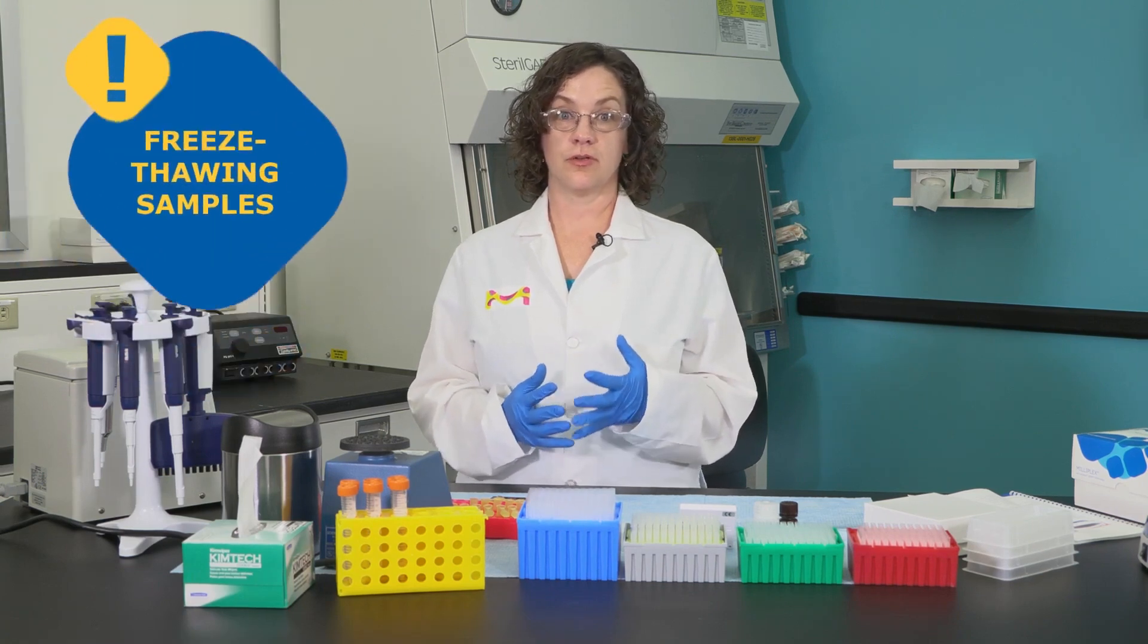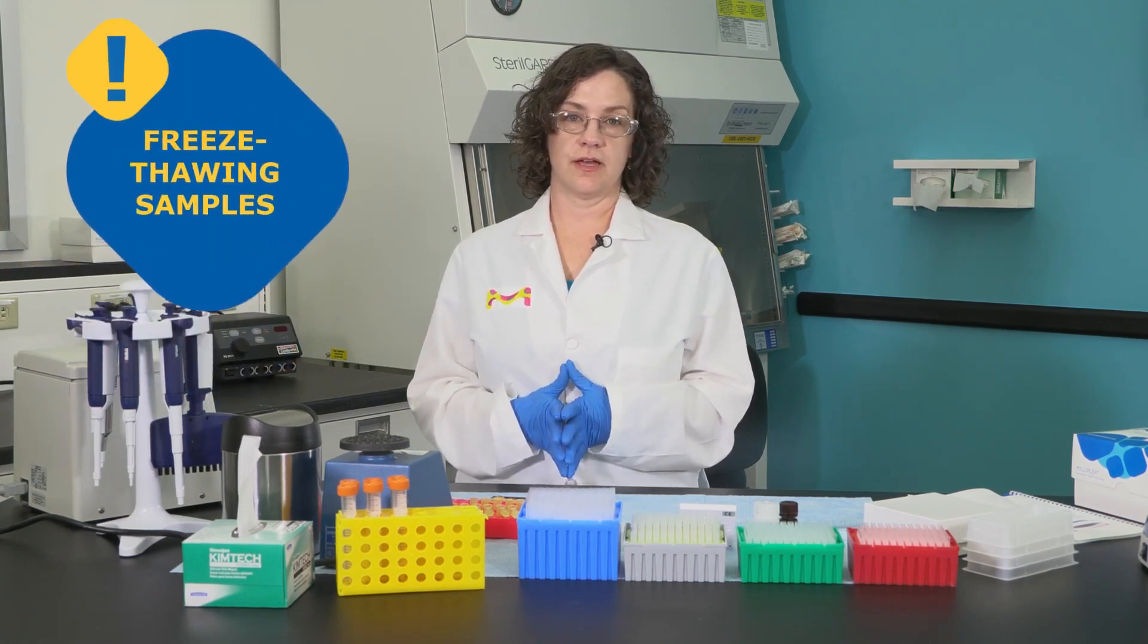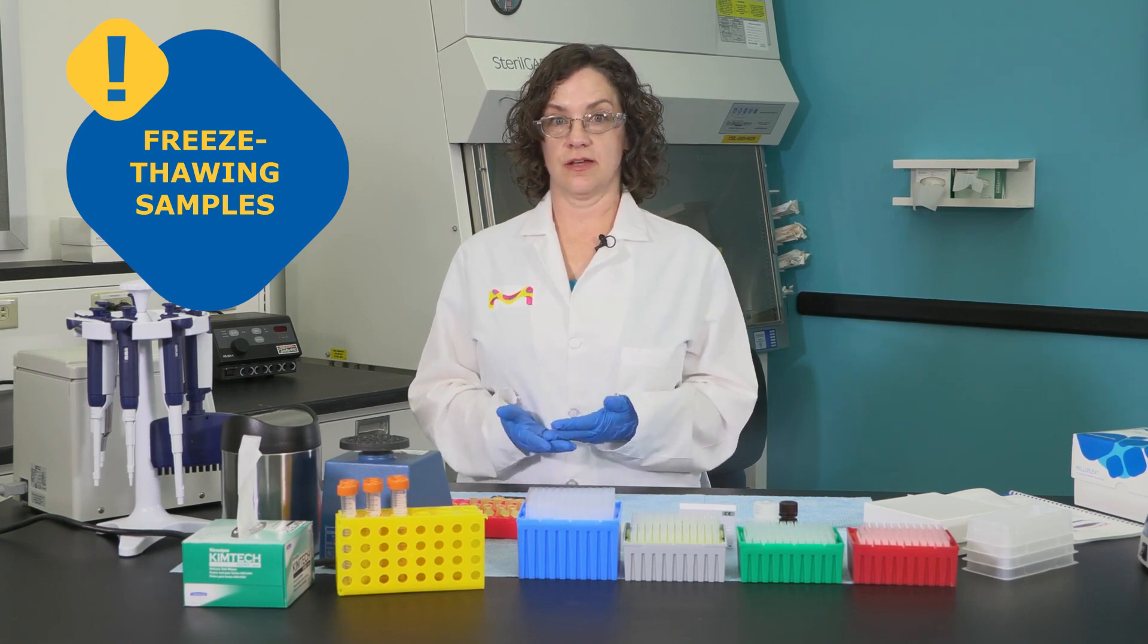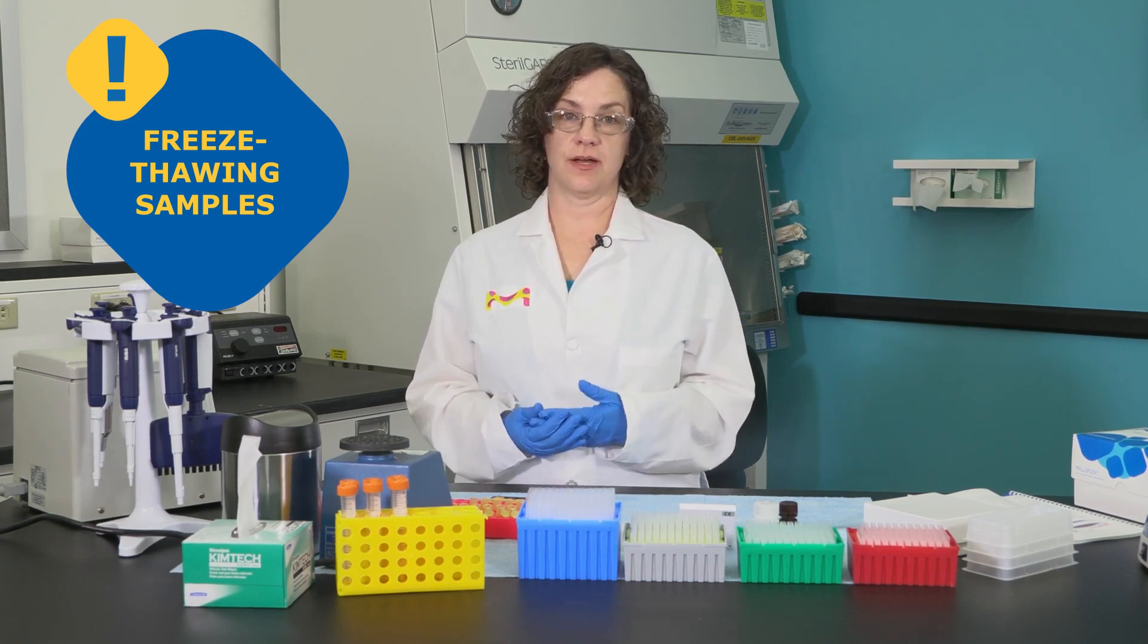It is important to avoid multiple freeze-thaw cycles on your samples. Most Milliplex protocols recommend less than two freeze-thaw cycles to ensure accurate sample concentrations.